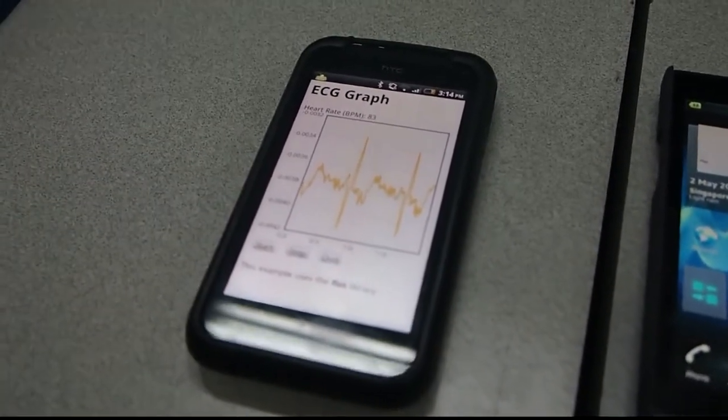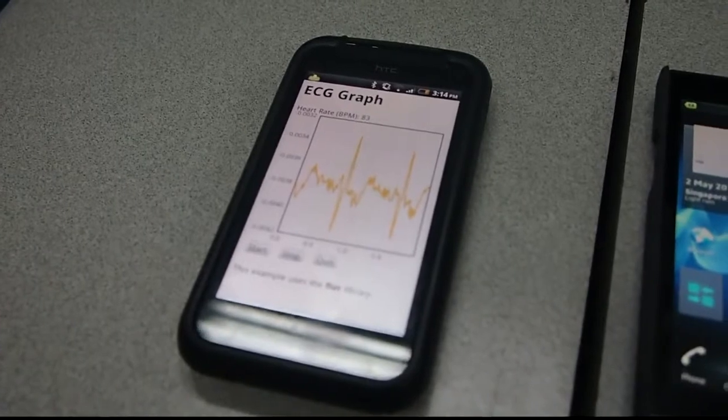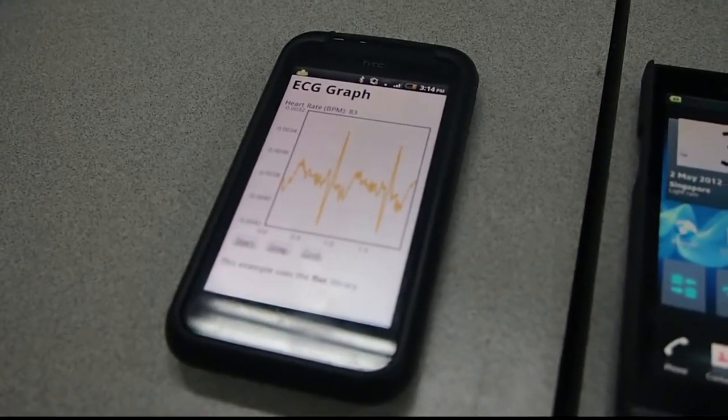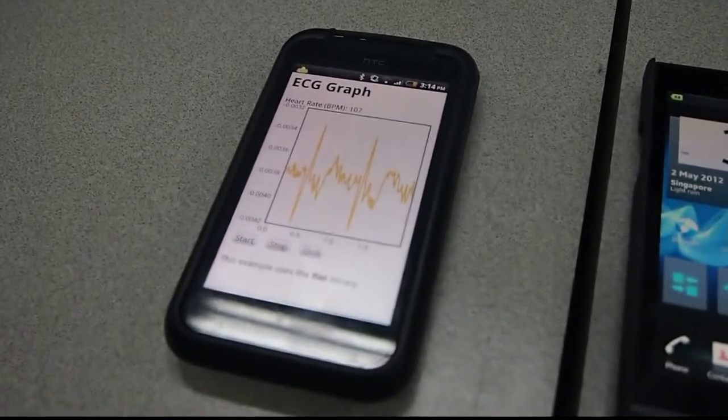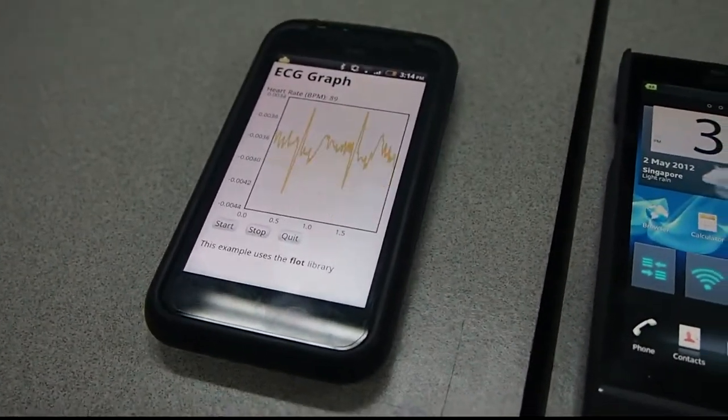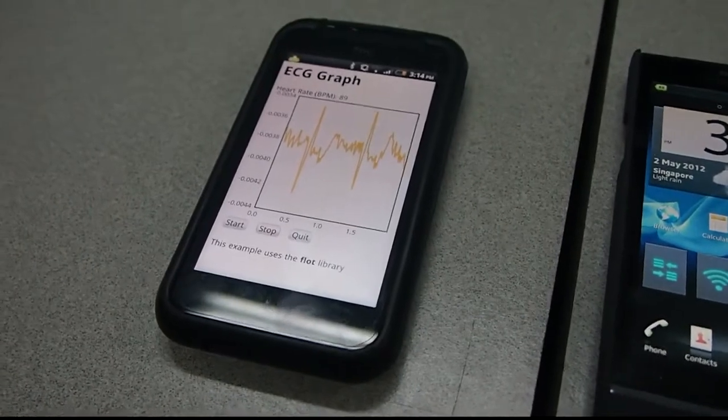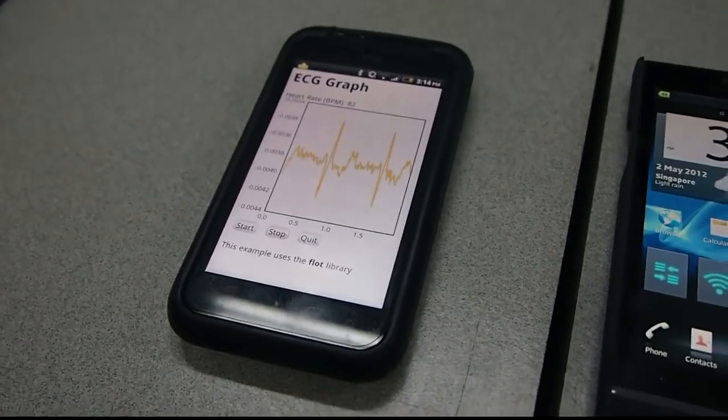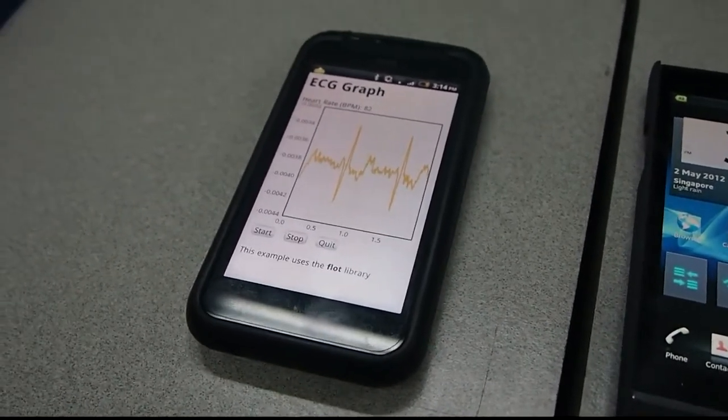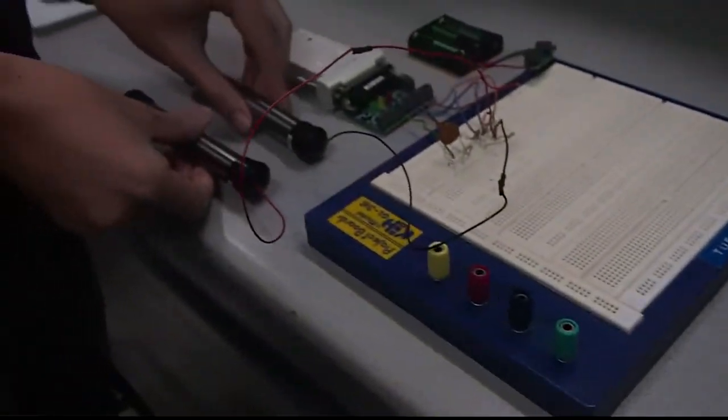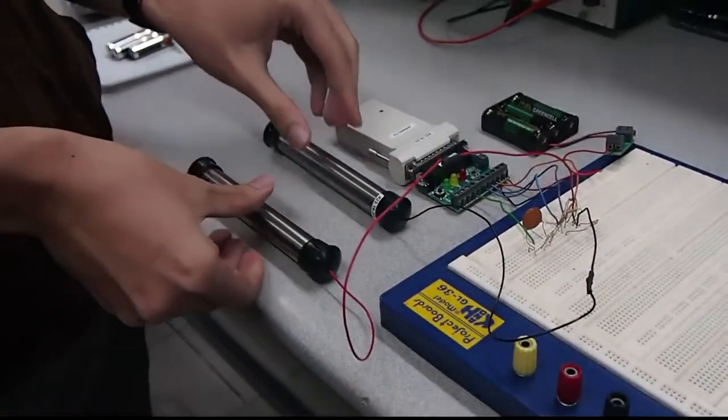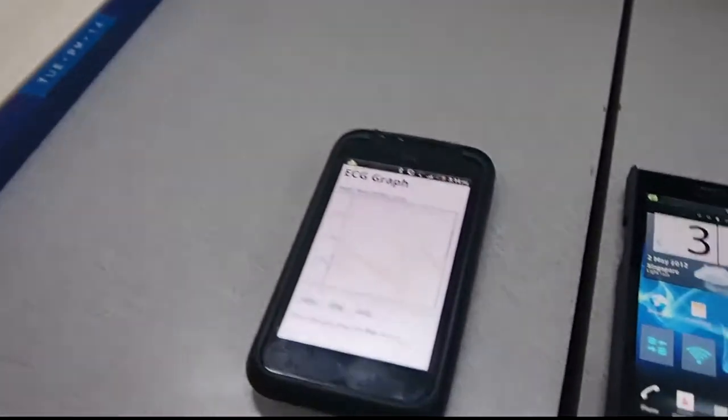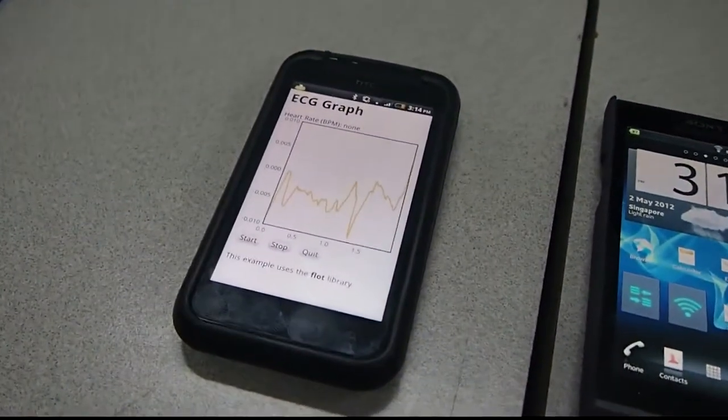Now I'm going to demonstrate a scenario to you if, let's say, the person is encountering overworking. So my friend is going to put down the electrodes, and in a while you'll see an SMS alert come into the phone.